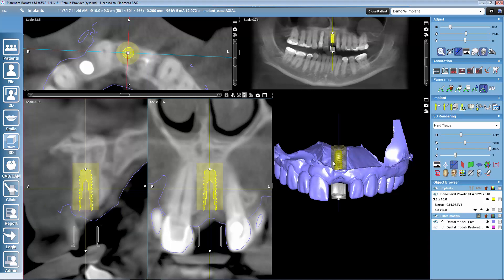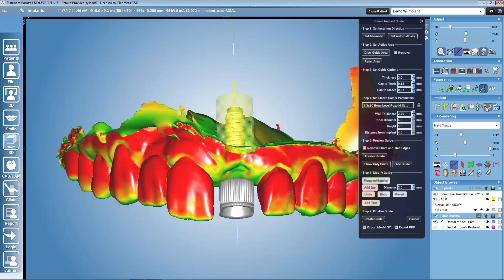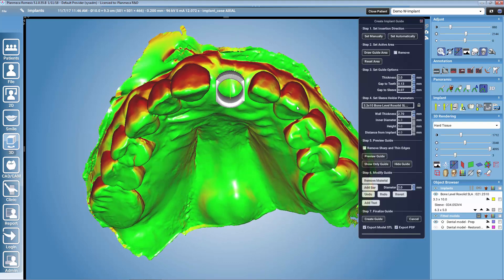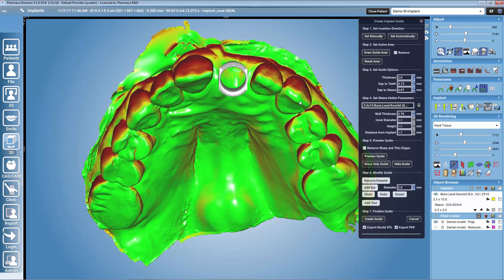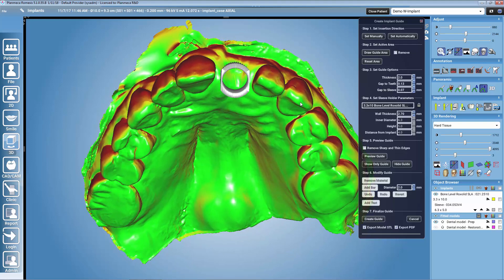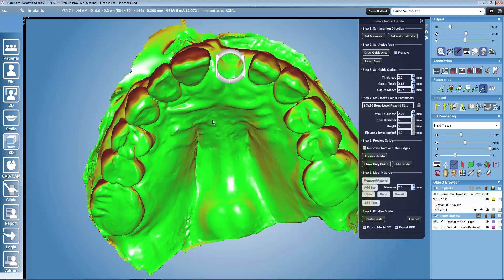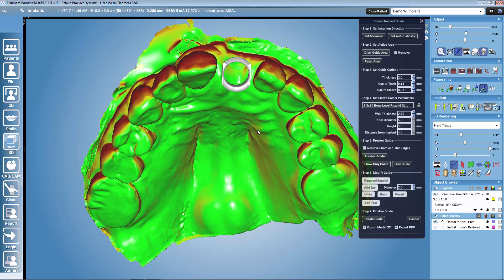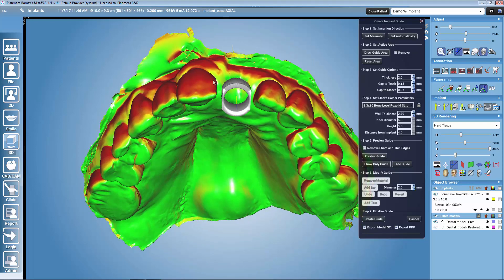After having the implant and the sleeve well in place, we can move to the implant guide designing. The implant guide designing is a very easy workflow. We start from step one and move downwards. The first step is to set the insertion direction. The insertion direction affects how the guide will sit on the patient's teeth — we want it to sit so that it doesn't fall over to the buccal or the lingual side. We must check that we have contact points for the guide equally on both buccal and lingual sides.